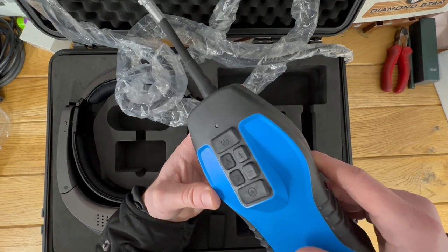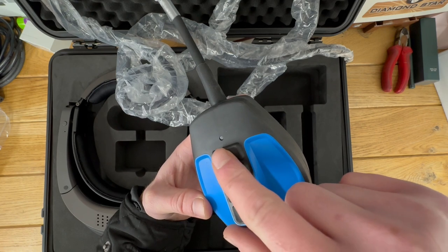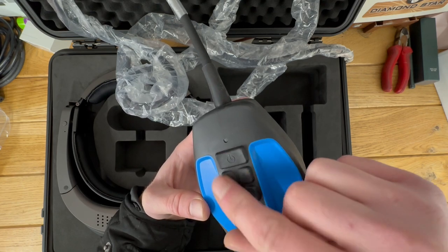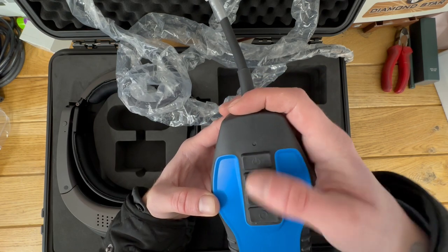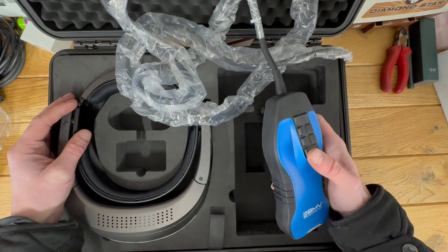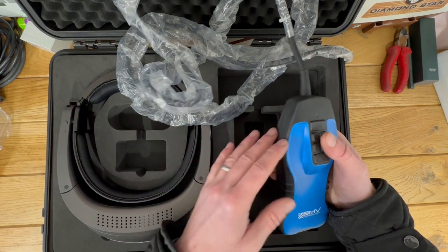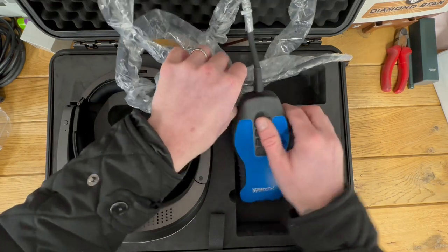At the top of the device you've got your buttons. Your power button is a long press and that'll turn it on. On the sides you've got your gain and your depth, and then you've got your freeze control. These are essentially to control the options within your goggles. If you've just bought an ultrasound and you simply want to plug in and play, that's absolutely fine — the goggles will turn on, connect to this straight away, and off you go.